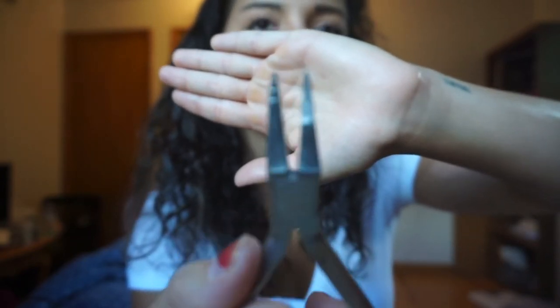This is a tweed plier — you can see the little rough edges on it. We honestly don't use this too often; it's used to make some loops. We hardly ever make loops while kids still have braces, but we do make loops in the lower retainer — there's a loop on each end of the bonded lower lingual. Once in a great while I'll see them making loops for wires going into the braces, but not too often.